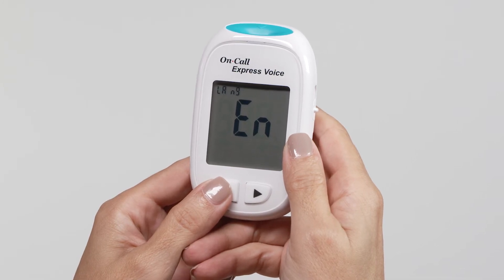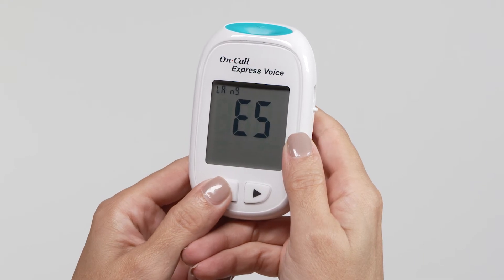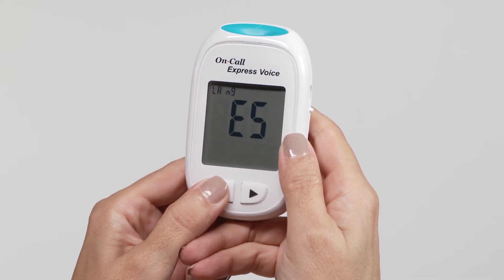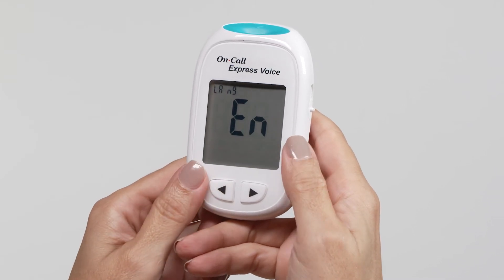Upon pressing the left button, the meter will say Spanish and display ES. To select the language of your choice, press the right button to save your selection and start setting the clock.